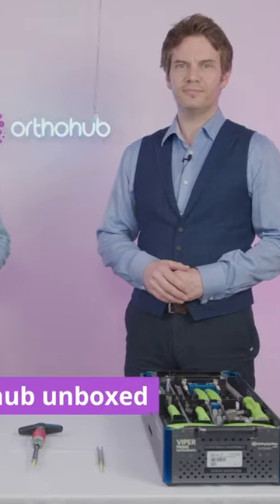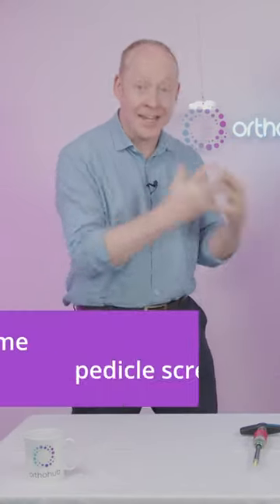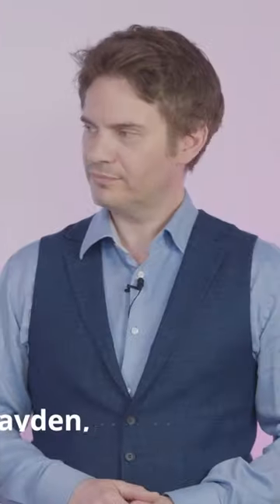The first of our Ortho Hub unbox videos where we take a kit, a surgical kit and an expert, and we pull it all out and see how it works.